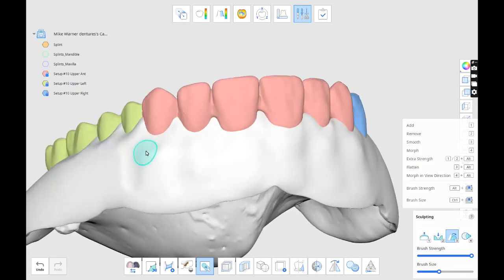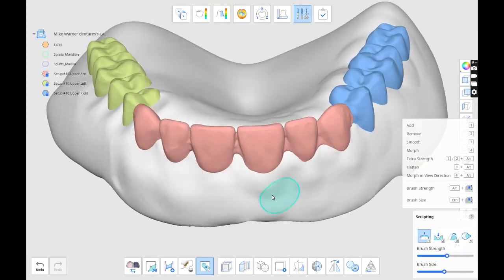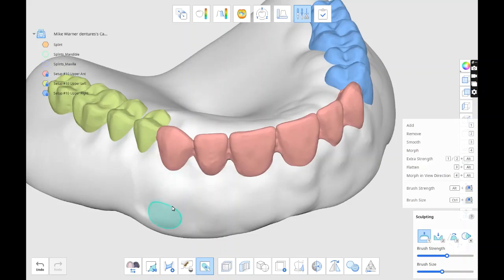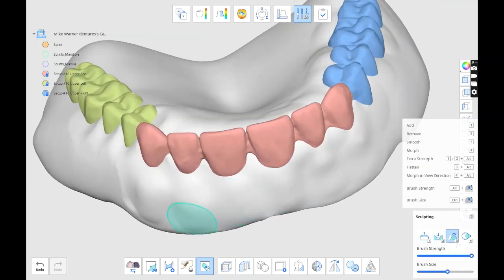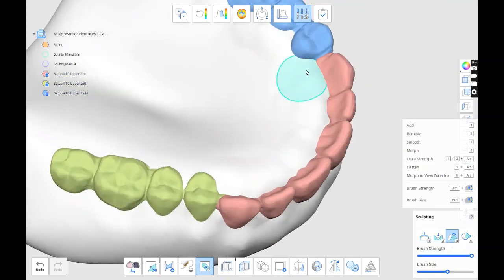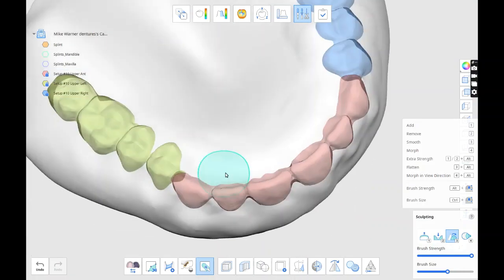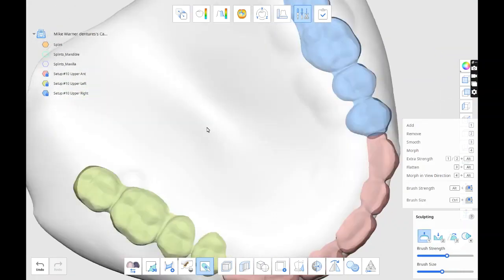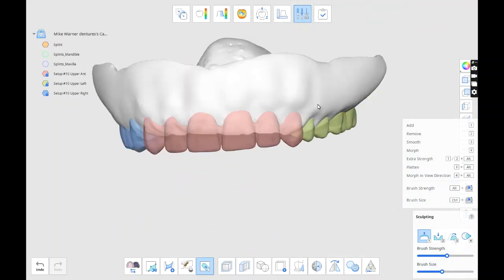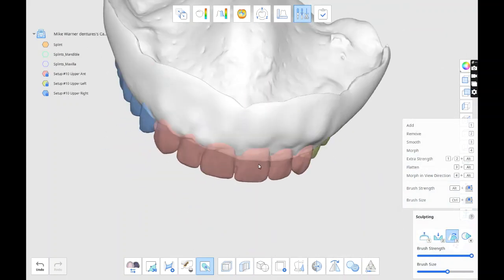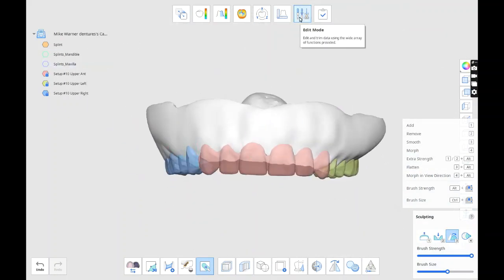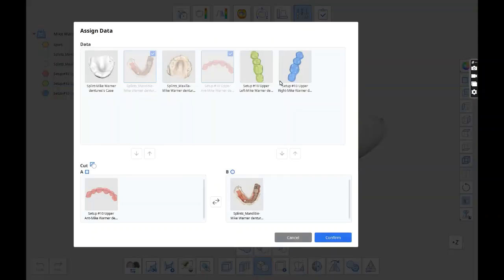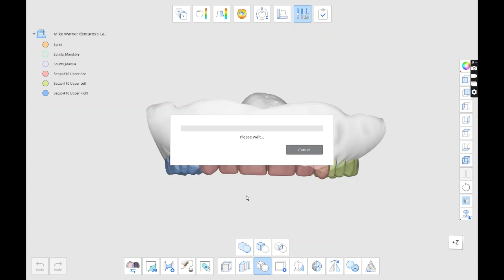I'm going to finish the festooning, and then we're going to combine the teeth. I forgot to combine the teeth, but you want to combine the teeth into one STL, because then you're going to make sure that they're not impinging on the gums. You want to make sure there's enough acrylic to cover the teeth, so that the gums, when you glue them together, have enough to hold them.